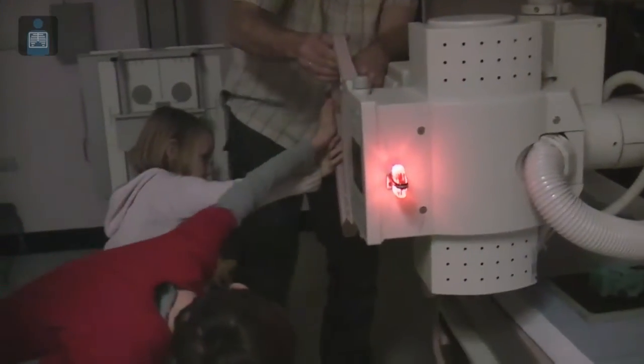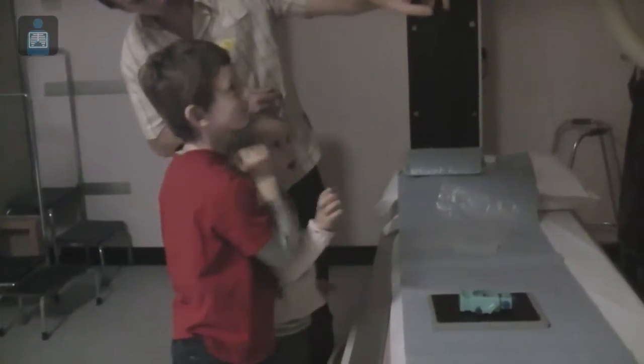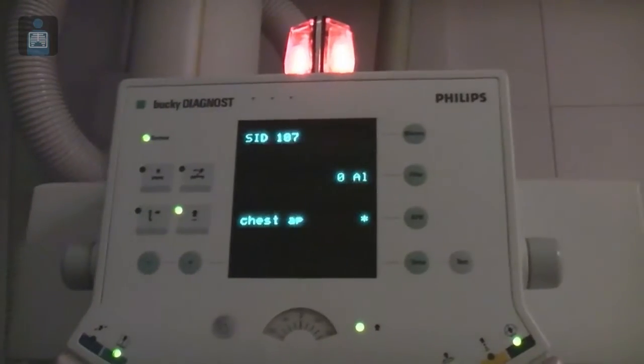We're going to go up to about a metre — and now we're going up again. A metre and eight centimetres. That's doing a little measure up here. And this is the light. So that's the middle, and that laser is showing us where the middle is.